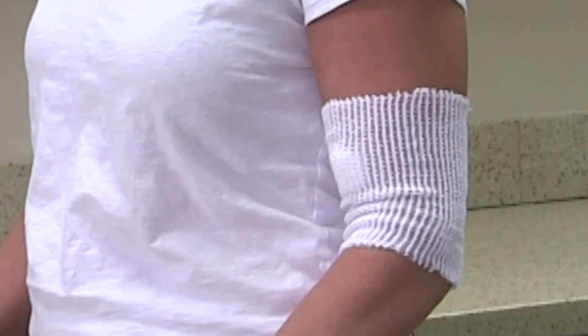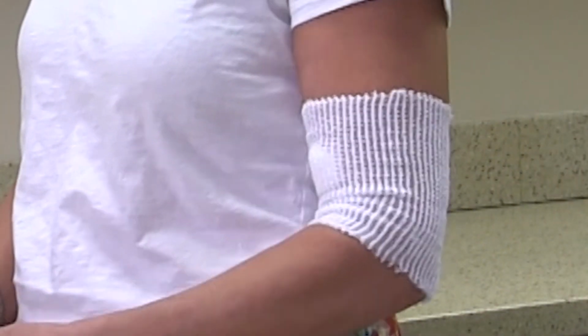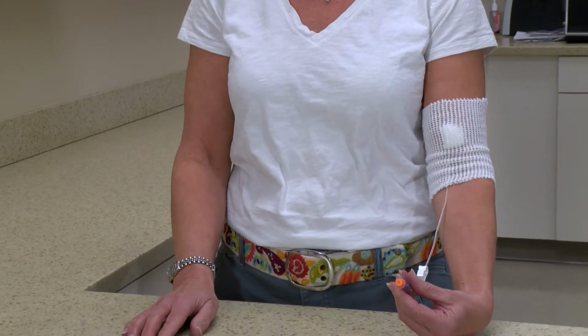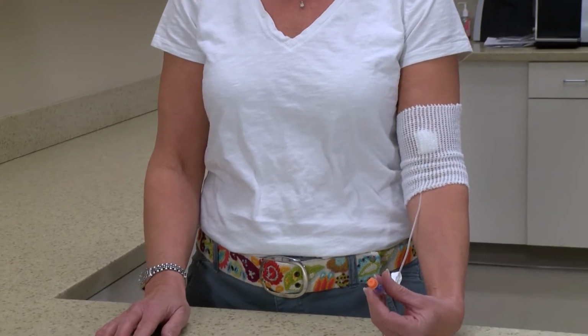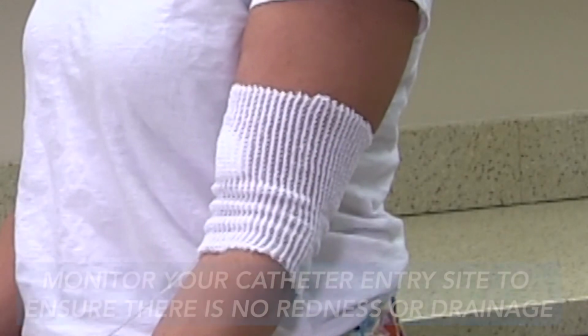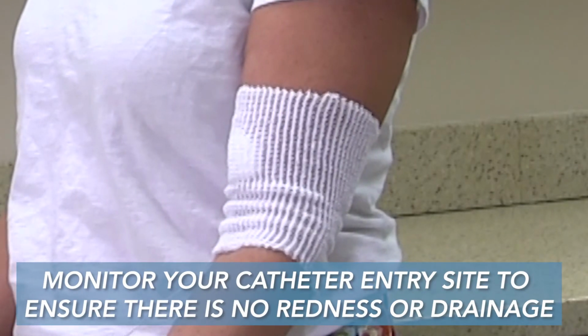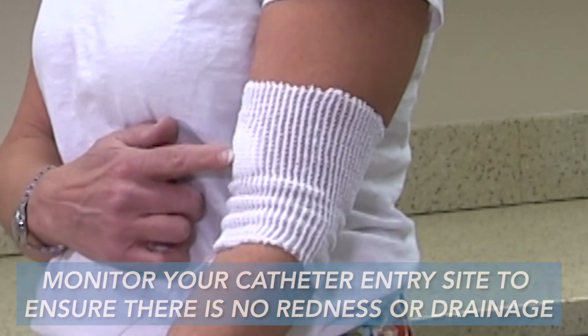You will have a dressing over the area where your catheter has been inserted. Your nurse will be the one to change this dressing, usually once a week. Notify your pharmacy if this dressing is wet or coming off, and a visit will be arranged to change this dressing. You will be asked to observe this site daily to make sure that there is no redness or drainage from this site, and if there is, you will need to notify your pharmacy.